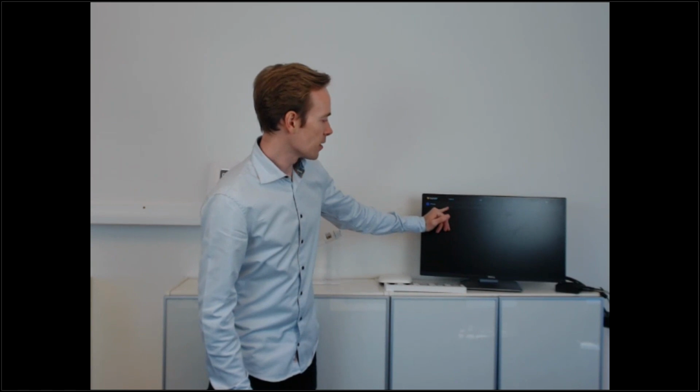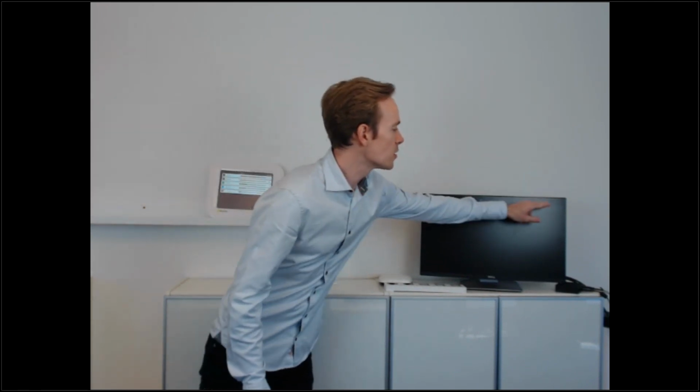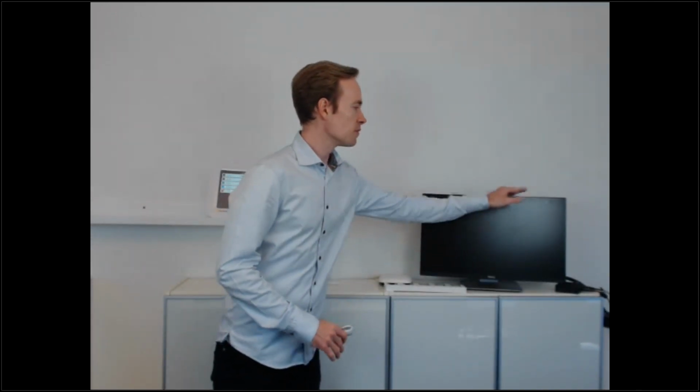The scale on the display goes from 40 microsieverts per hour up to 20 millisieverts per hour. In our prototype testing and experience, we found that to be a workable interval, and we chose to make it logarithmic to, on the one hand, make sure that we fit the higher exposures, but still be able to show something also in the lower range. Otherwise, we either wouldn't be able to fit the higher ones, or the lower ones would just round to zero.